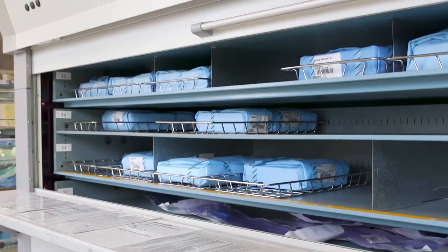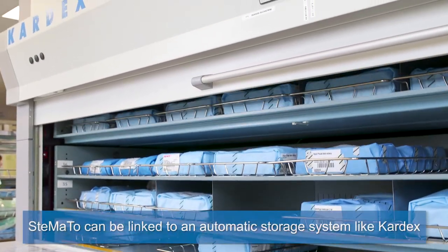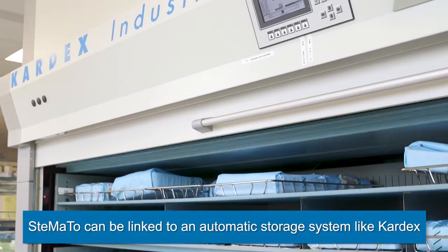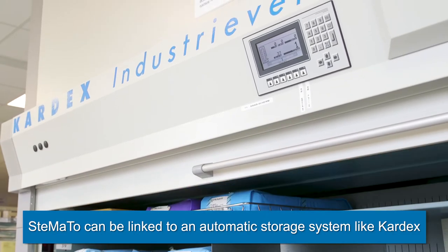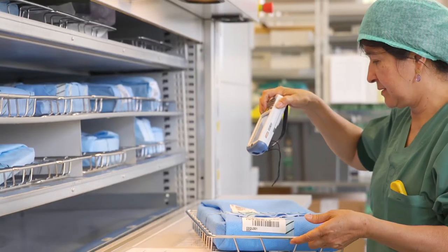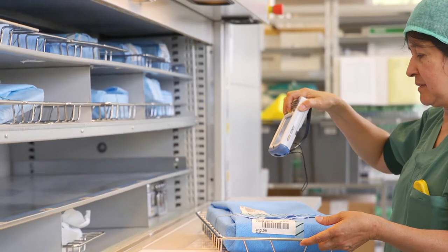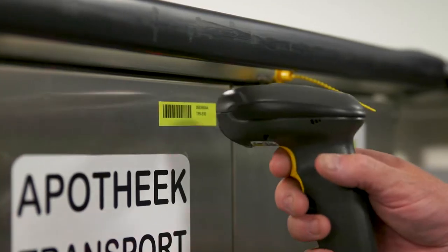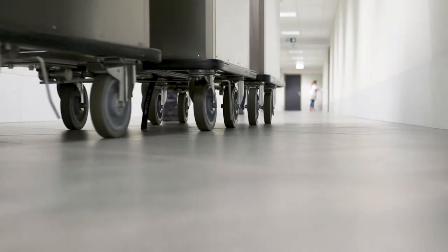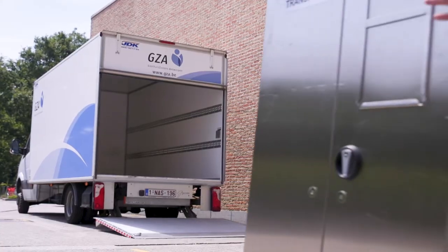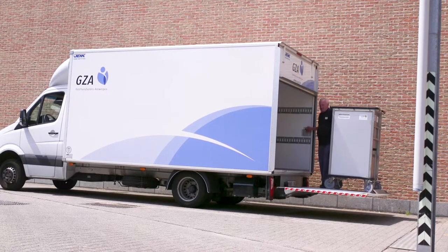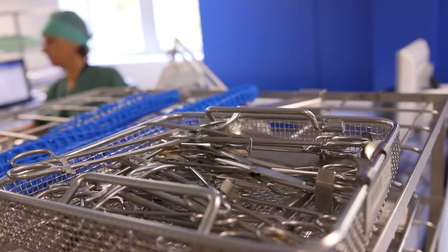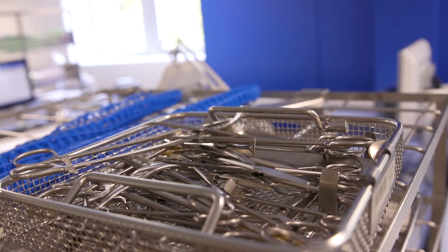The necessary instrument information and handling procedures will be available for each type of user and are monitored throughout the full process, reminding or even blocking next steps in order to prevent human errors. The monitoring also covers transports and storing inside and outside the hospital and CSSD.